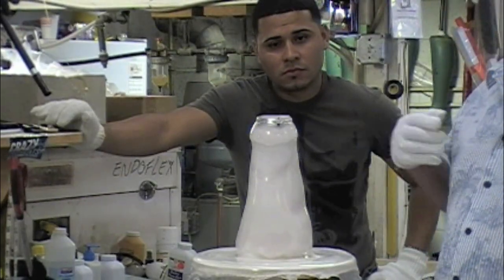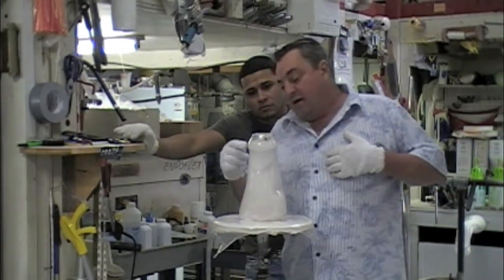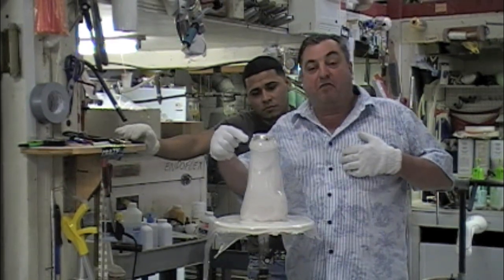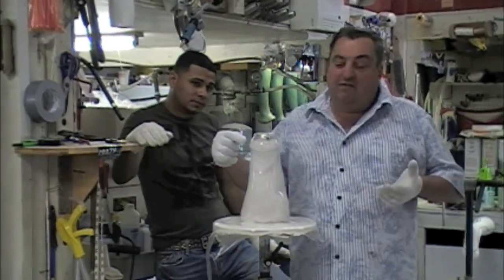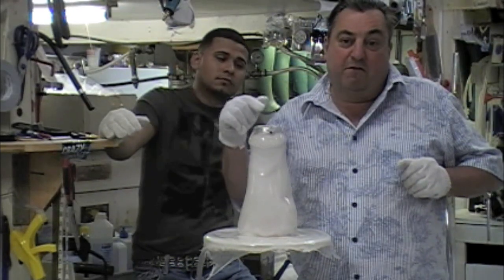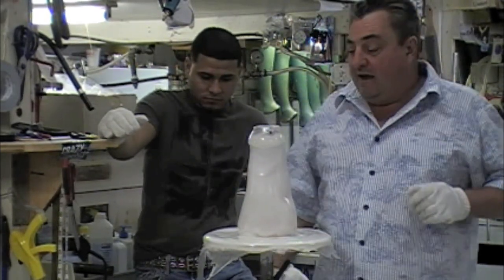This is going to be a vacuum socket. What we're going to do is drill the hole right in the back where it's triple thick, because in that region your plastic is still over a half inch thick. And that's where we're going to drill the hole for the vacuum part, so you've got a good strong place to anchor it.